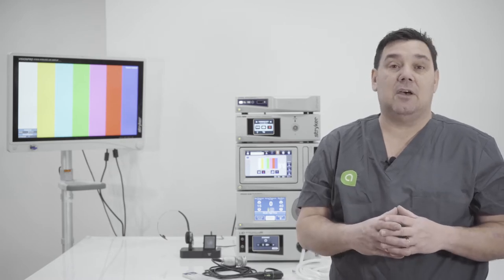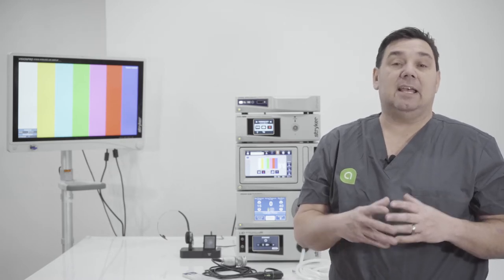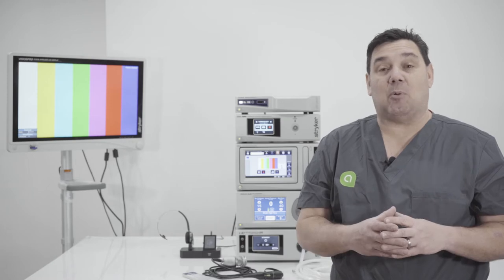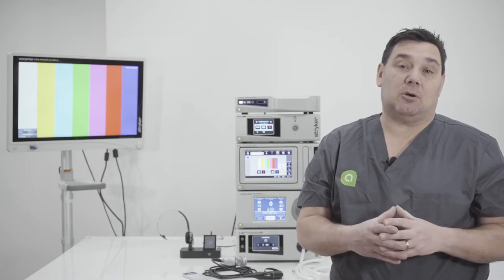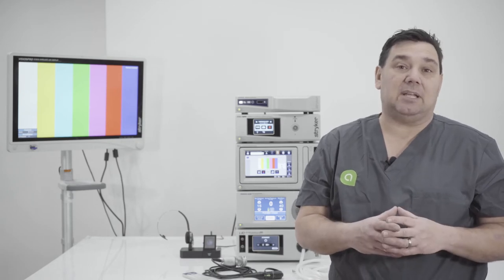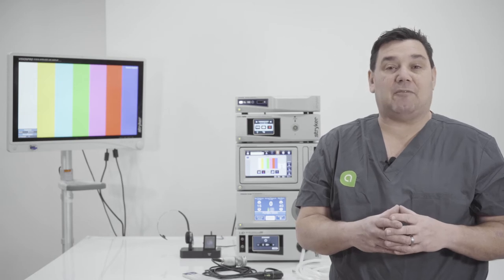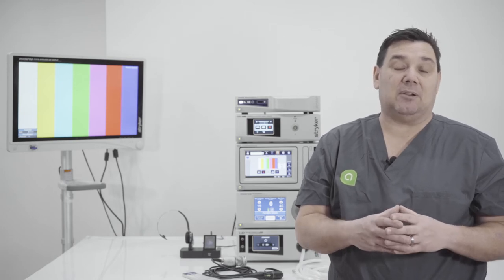One of the biggest improvements for the SDC 3 is the Wi-Fi capability. The unit itself has a built-in Wi-Fi that will grab a Wi-Fi signal from your facility. Where this comes into play is if your facility is actively doing EMR, or electronic medical records — you wouldn't need to plug the SDC into a Cat5 jack in the operating room; you could just send those images over wirelessly.